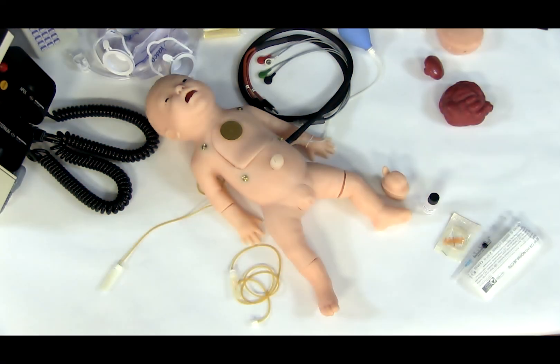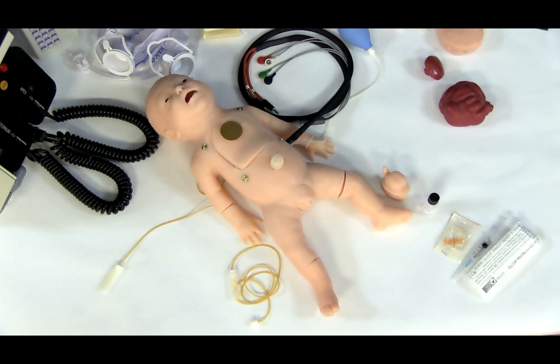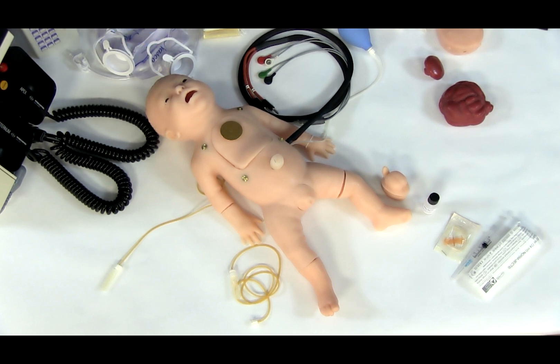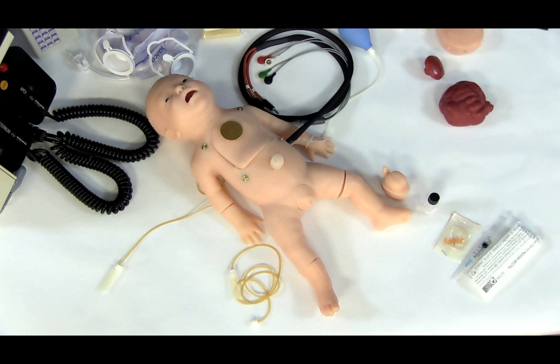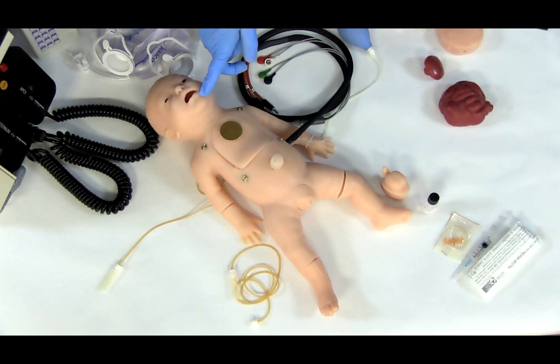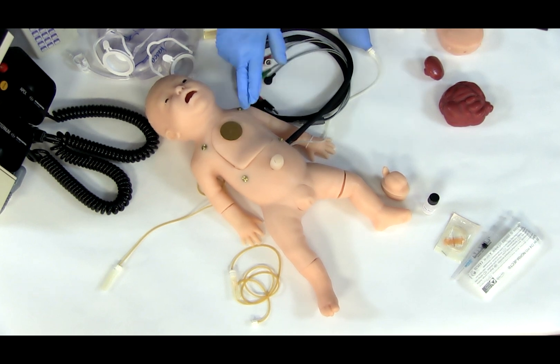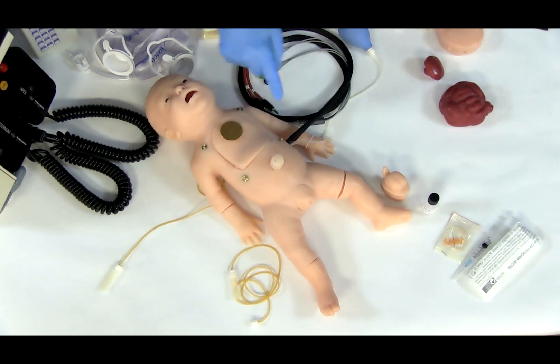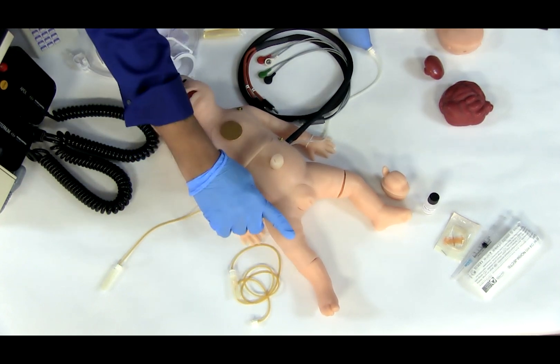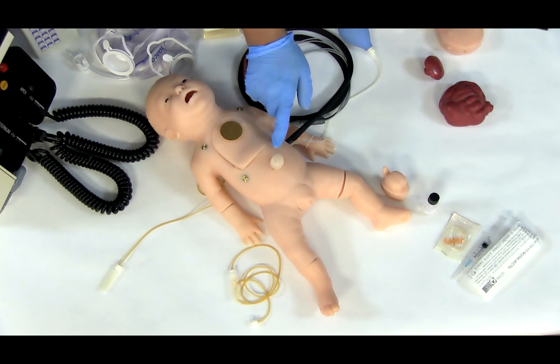Charlie can be used for various neonatal simulations established in the Neonatal Resuscitation Program Guidelines and include NG tube placement, intubation, CPR and defibrillation, PICC line placement, IV injections and withdrawals, IV infusions, chest tube placement, and umbilicus catheterization.